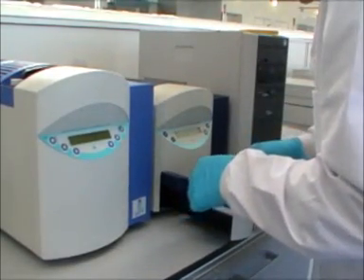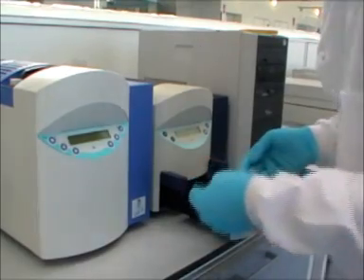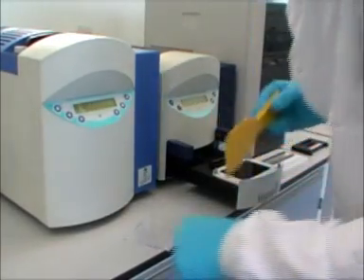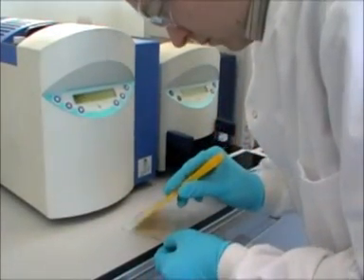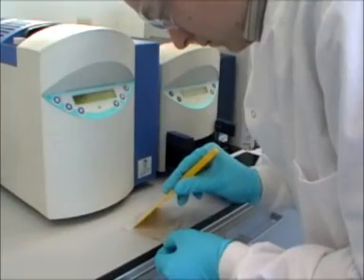The gel is then carefully lifted. And using the gel slicer, the gel buffer blocks are carefully cut away from the running gel.